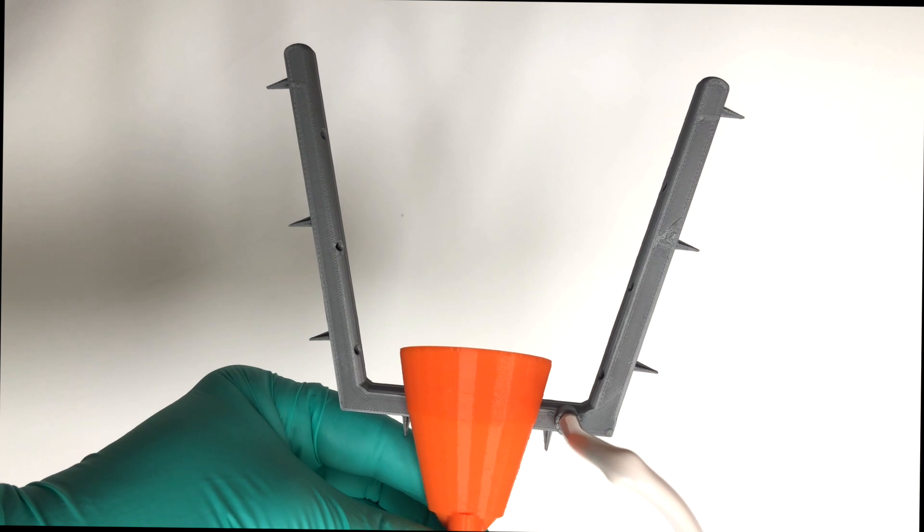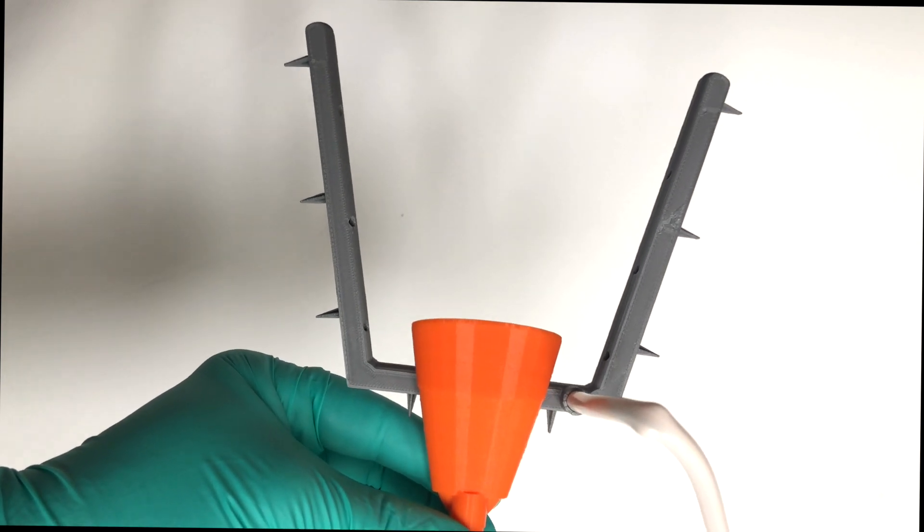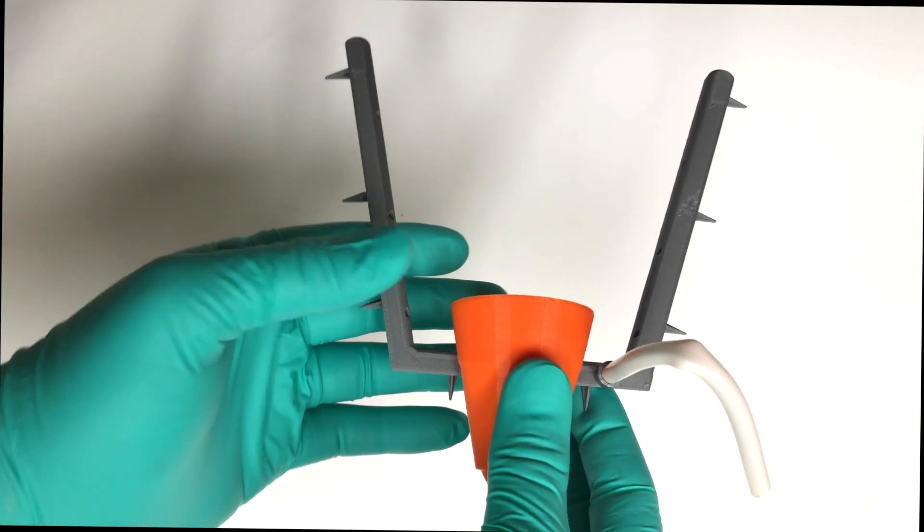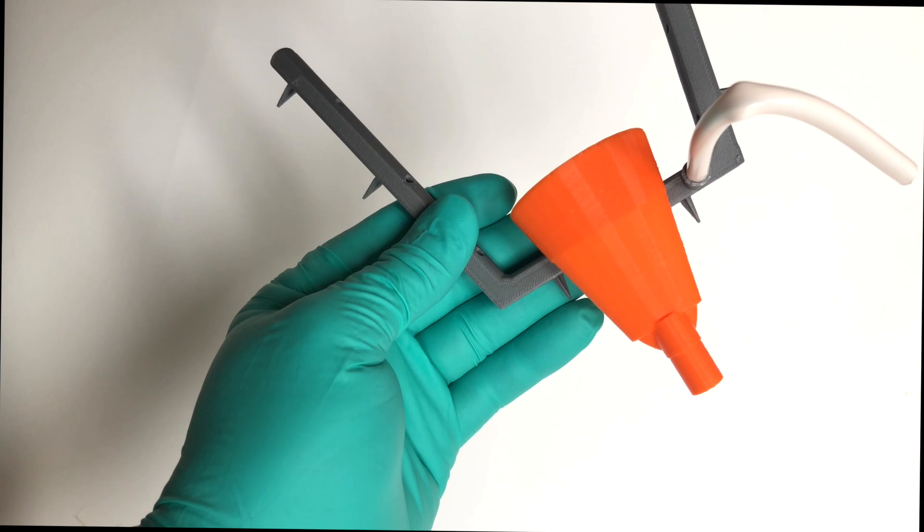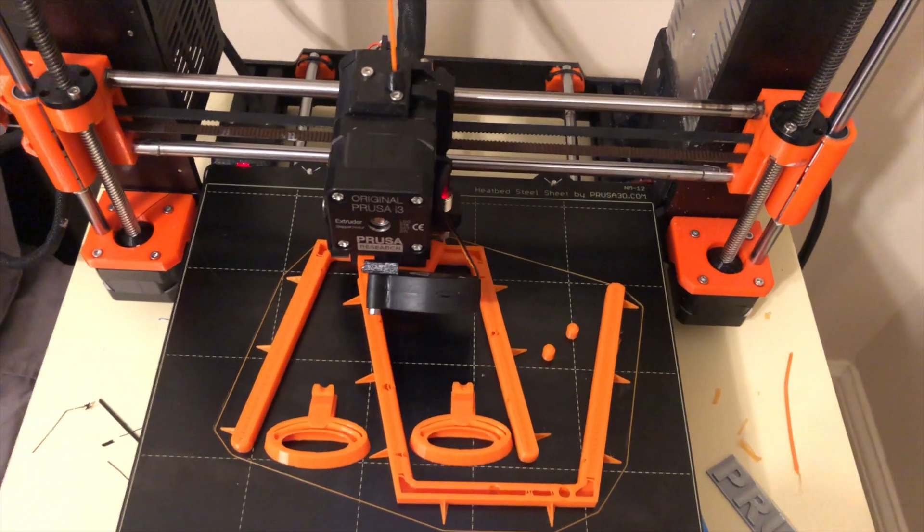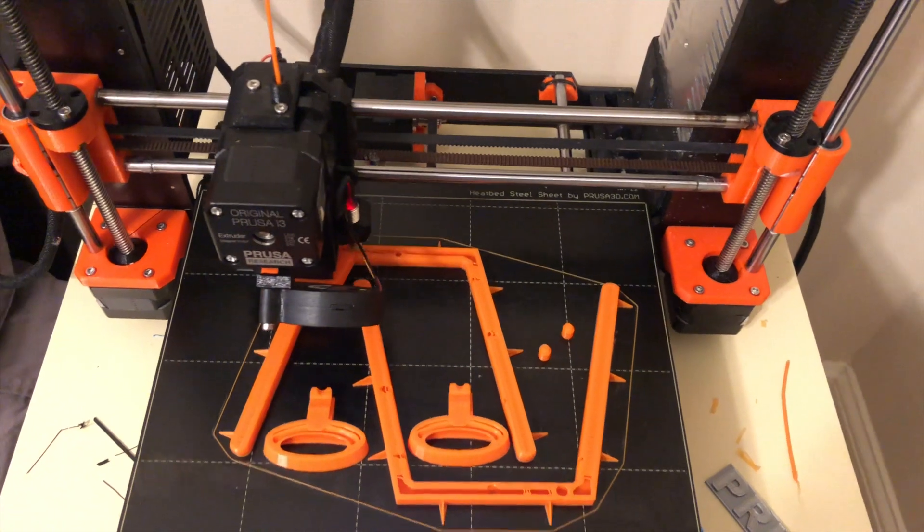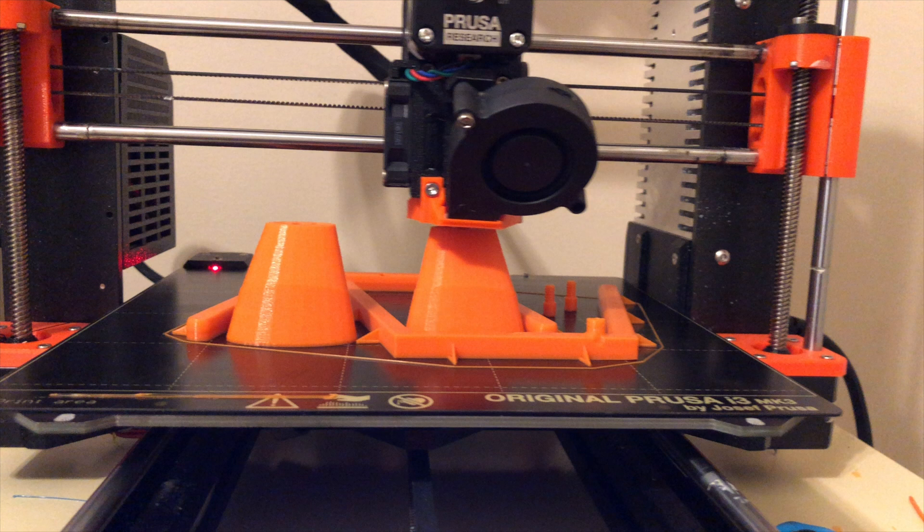So let's talk a little bit about 3D printing this thing, and then we'll go into a quick clinical case so you could see it in use, because I think you need to see the whole story to understand exactly what it's doing. So I like to use fused deposition modeling to print these. If you guys are scared of printing, don't be. It's really easy. Get a cheap FDM printer. They could be like 200 bucks and they're really fun to use.